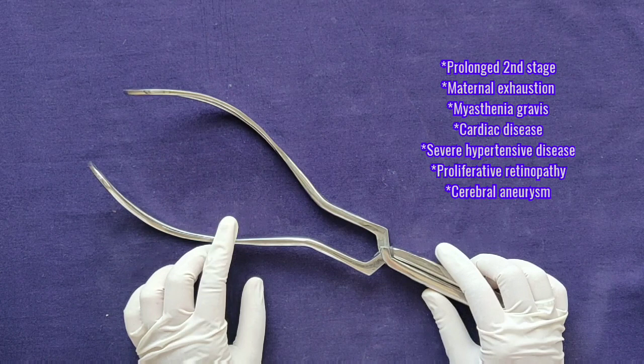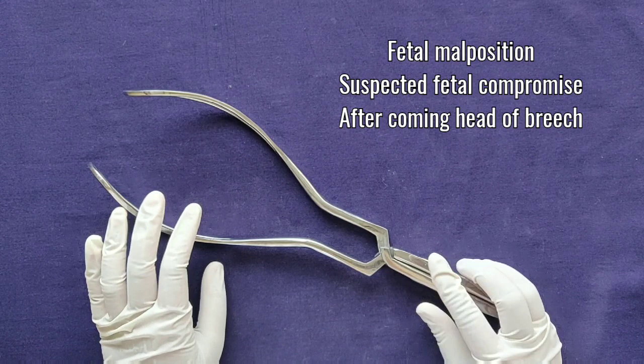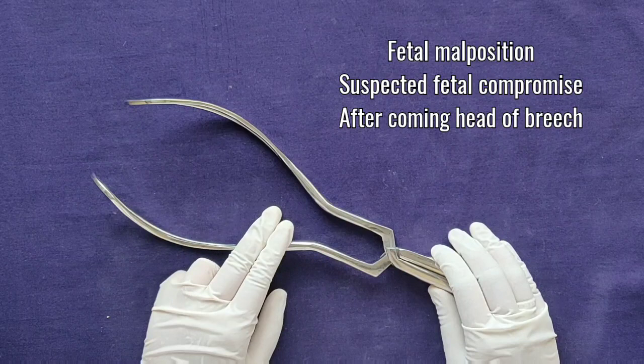There are also fetal indications, such as fetal malposition or suspected fetal compromise where we need to deliver the baby as soon as possible. Piper's forceps can also be used for the after-coming head of the breech.